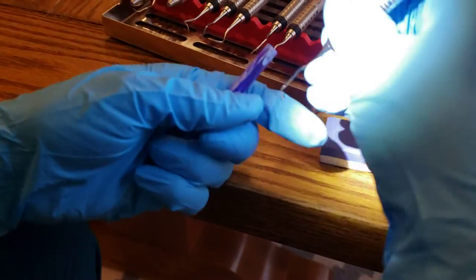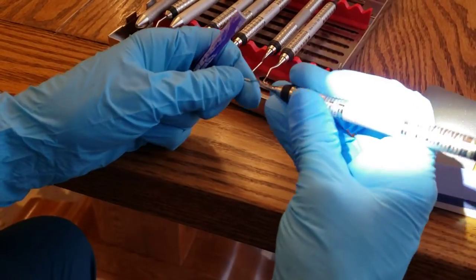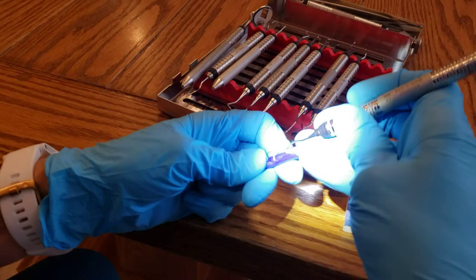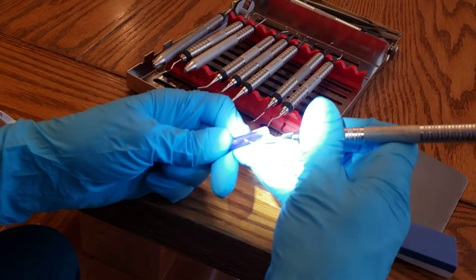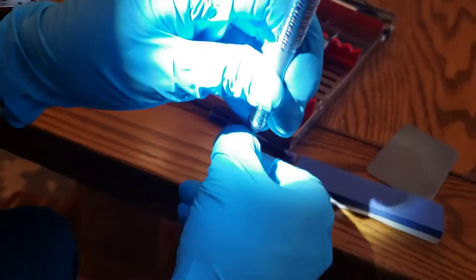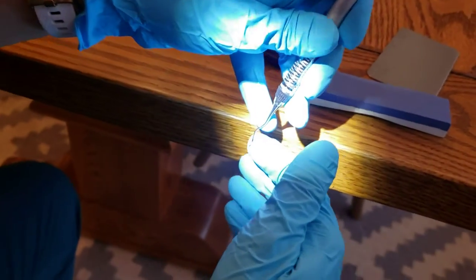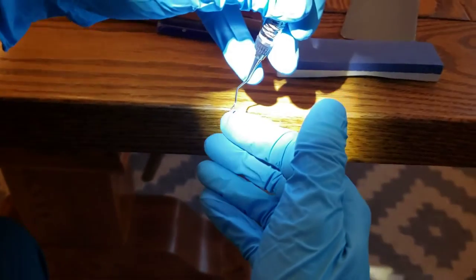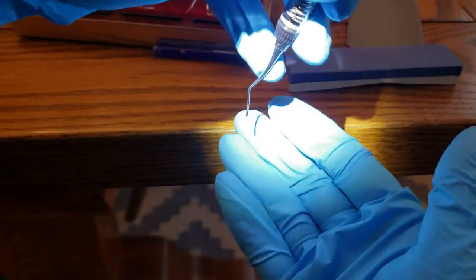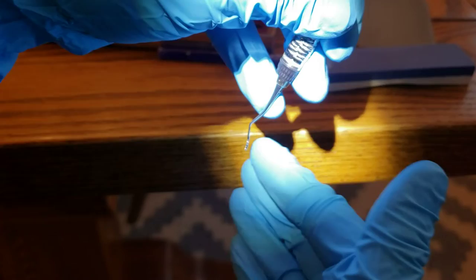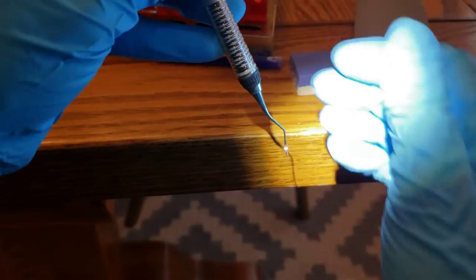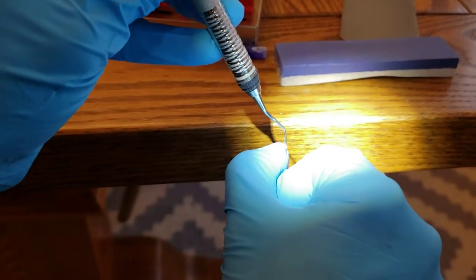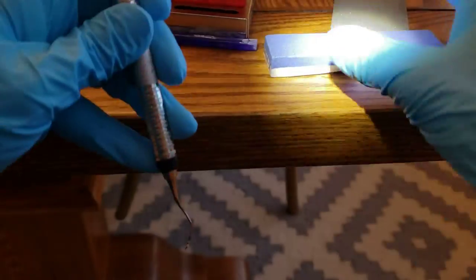Okay. So this is an 11-12. No, I just did the 11-12. This is our 13-14. That's not too bad. This one needs sharpening. So we'll go on this side. So you know, on your curette, you're going to hold it perpendicular to the floor. The side that is angled down is going to be your blade side, and then it's mirrored. So when you go to do the other side, you're going to flip it around and do the opposite side. So start there.